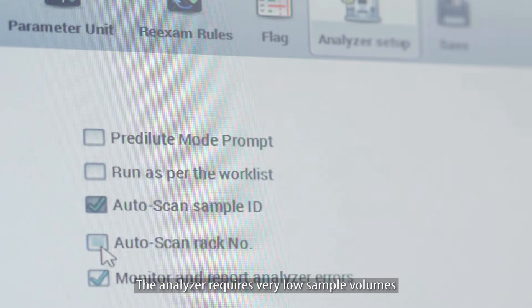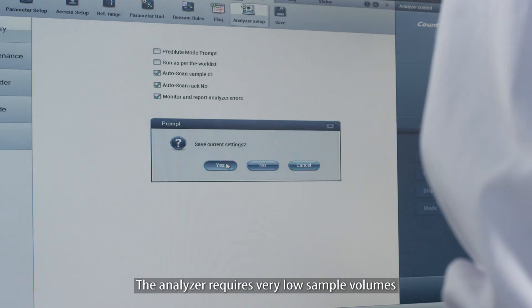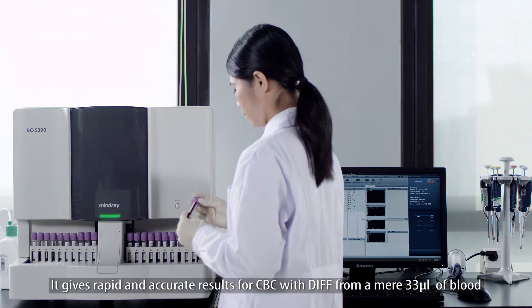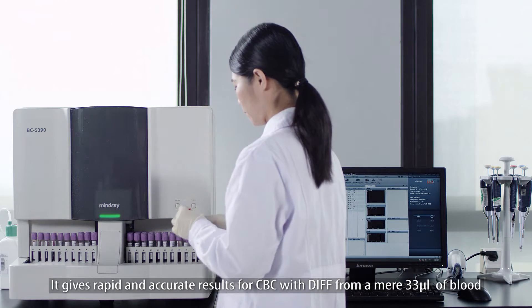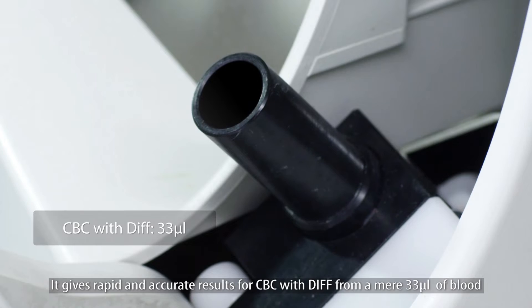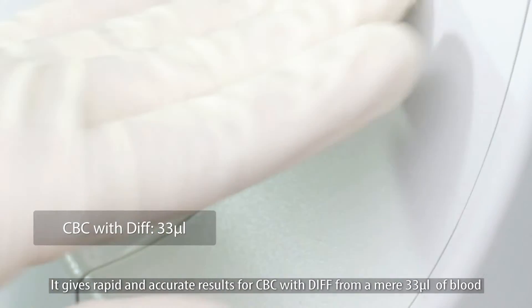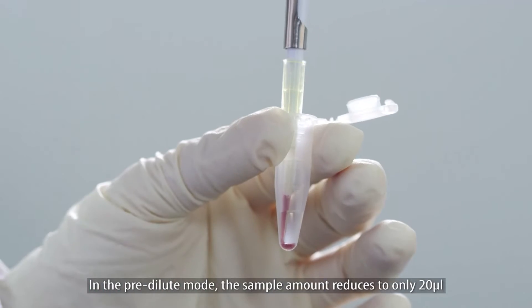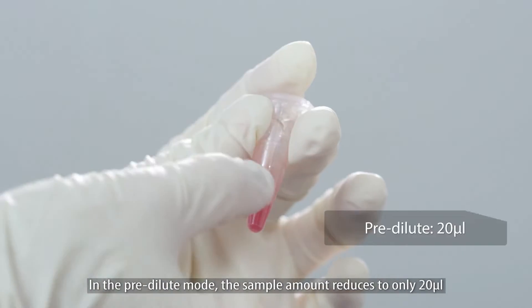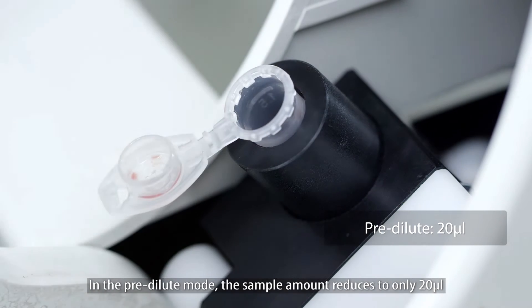The analyzer requires very low sample volumes. It gives rapid and accurate results for CBC with diff from a mere 33 microliters of blood. In the pre-dilute mode, the sample amount reduces to only 20 microliters.